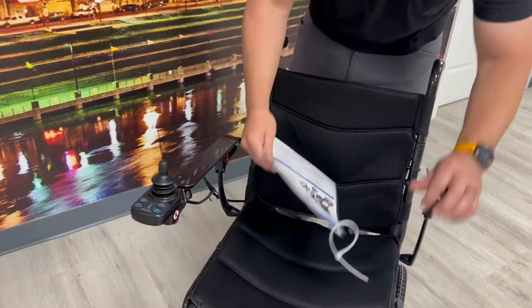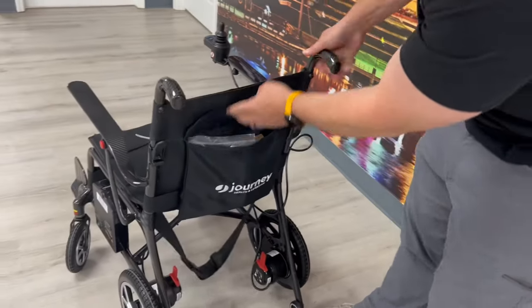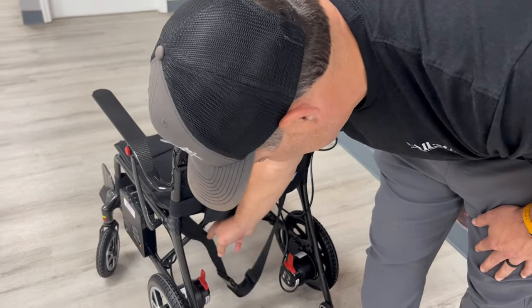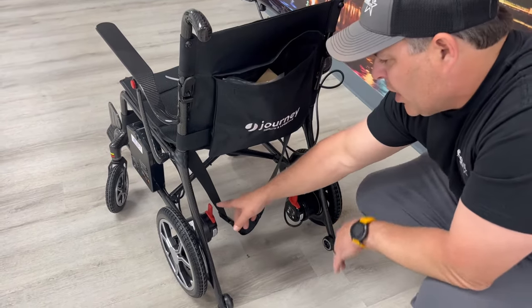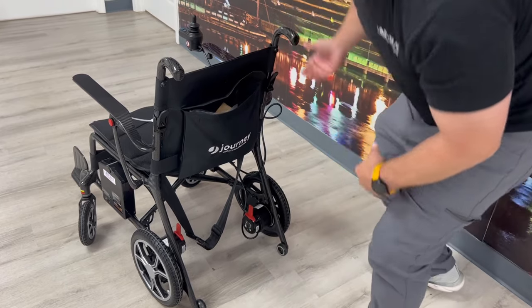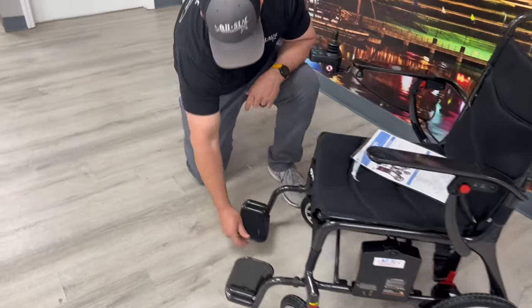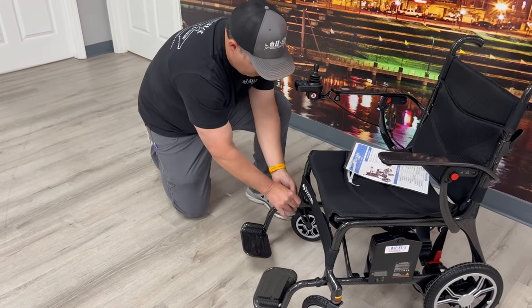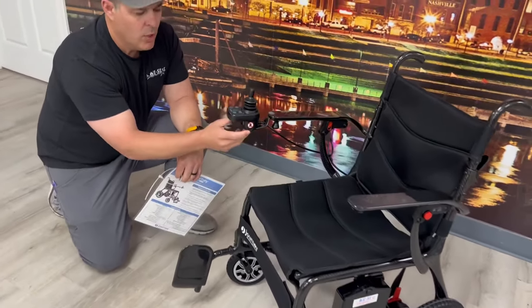The back can also fold down — it has little clips right here. There's a pouch in the back that has the charger and the owner's manual in it. It comes with a seat belt, and it has built-in anti-tippers. On the motors, the rear levers can be disengaged to put the chair into neutral if you need to push someone around, and it does have handles for that. The leg rests are carbon fiber, very basic, and can be taken off and reinstalled simply. They also fold up.